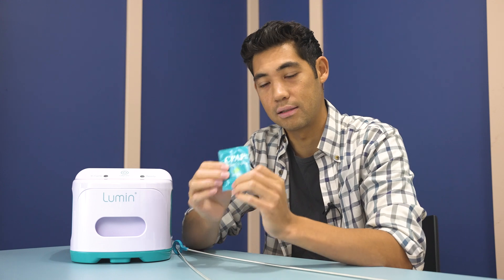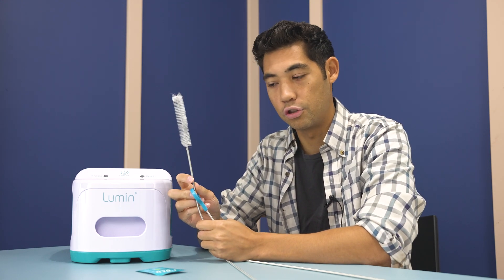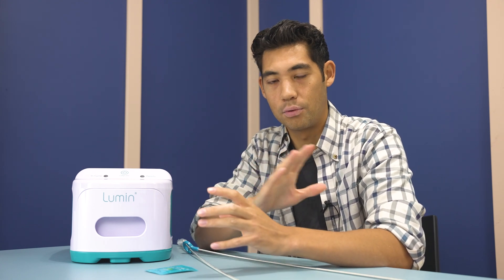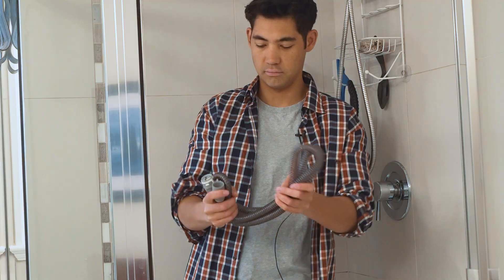To wash these things, you want to use mask wipes to wipe down your mask daily. You can use a tube cleaner with soap and water or vinegar, and a cloth to wipe out that water chamber. Use a brush for your tube and mask wipes for your mask so you can actually wipe off that barrier. Just soaking with soap and water will break down those biofilms so they can be washed away, but every so often you should do a deeper clean with tools like this so you can scrub away that biofilm, because it is a little bit harder to get rid of than just washing away bacteria.